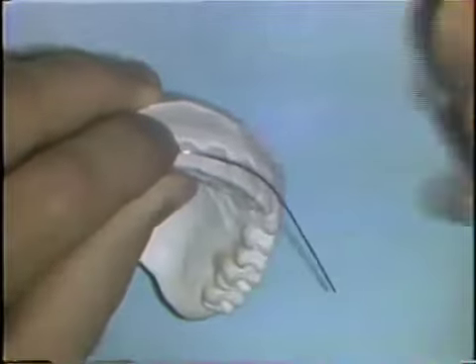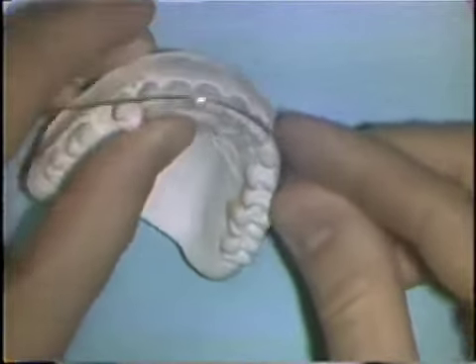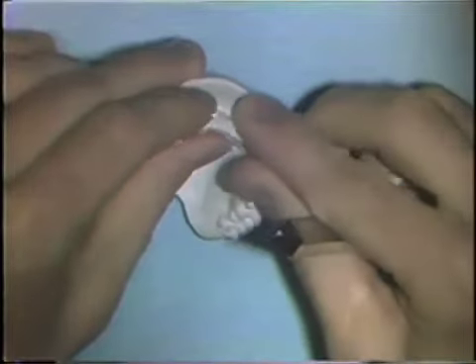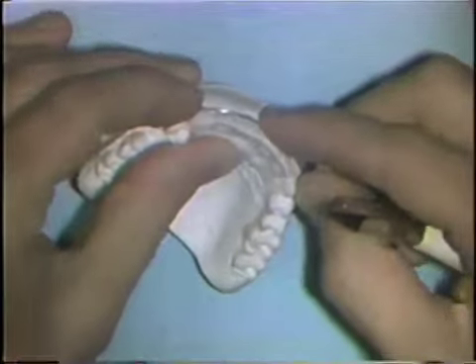You mark the spot where it last contacts the model right in the middle of the lateral incisor. And then you can use that spot for orientation to return the wire to the model for adjustments. At that point, you make a small bend to bring the wire into closer contact farther down the length of the labial wire. You can do some of this bending with your fingers. Now the wire contacts the cuspid, the lateral incisor, and the central incisor. You continue this procedure of adjusting the wire until it contacts each labial surface.